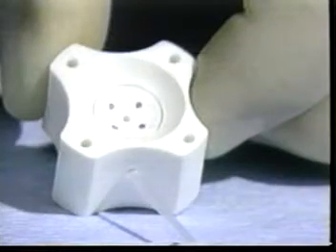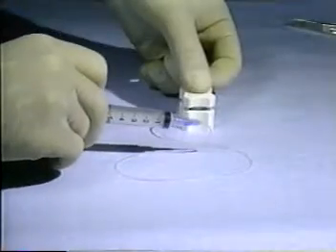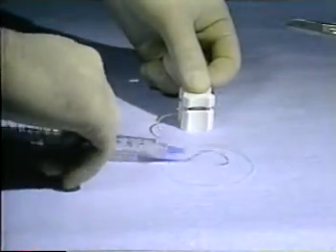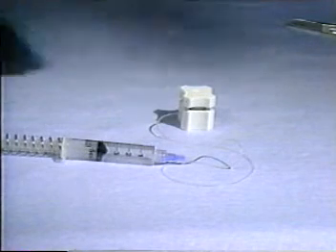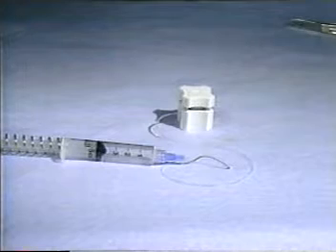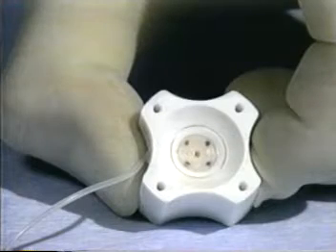The well of the cutting block contains a central positioning hole and four additional holes, which are used for marking suture points. It also contains a circular trough 12 millimeters in diameter. The syringe creates a vacuum behind the holes and trough in the well of the block, which prevents the cornea from slipping as it is being cut and ensures the corneal button will remain in the well of the block and not in the blade when the blade is removed.